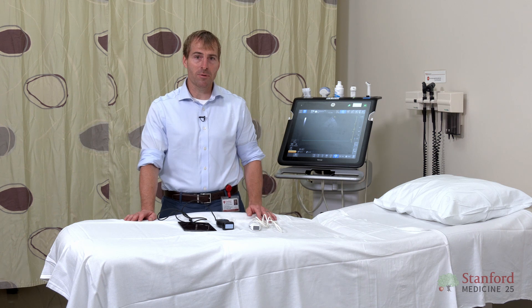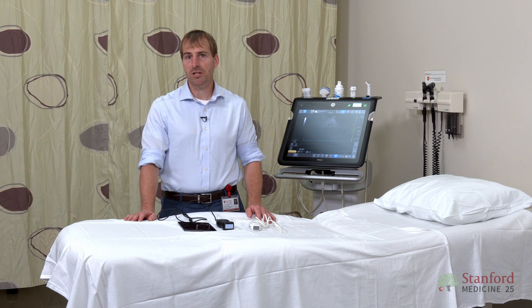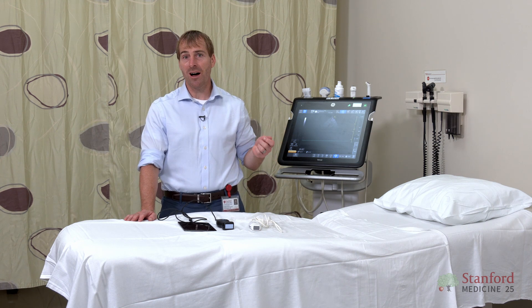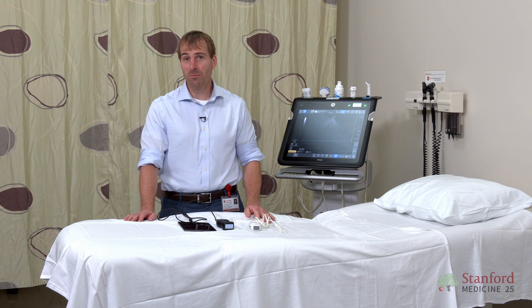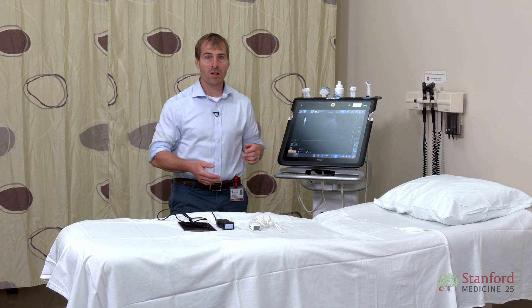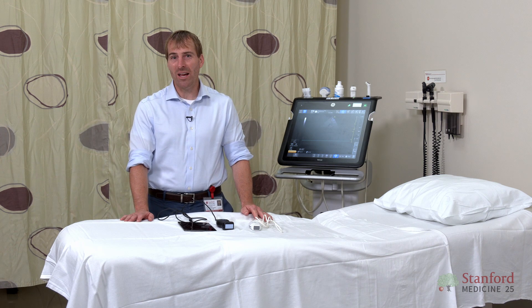I'm going to make a recommendation: since you're starting your journey, you really want to make sure that you have a chance to practice. The analogy I usually like to make is, if I was working with trainees and I told them, here's your brand new stethoscope — I want you to lock it in a closet down the hall, and every time you need to use it, here's a key, you can go unlock it. Guess what? You probably wouldn't listen to the heart or lungs very often. It's the same thing with ultrasound. If you have a big cart-based machine that's locked up down the hall, you might use it when you really need it, but chances are you're going to find ways to not go down the hall and take the time to pull this machine out.